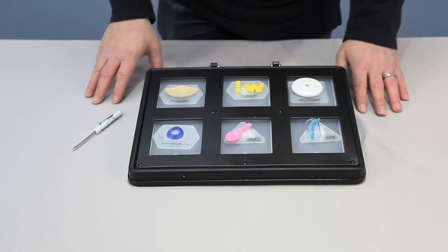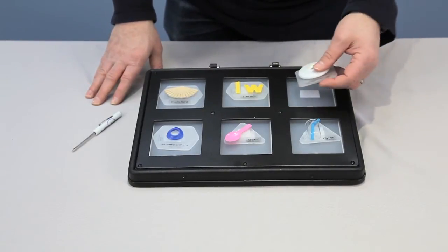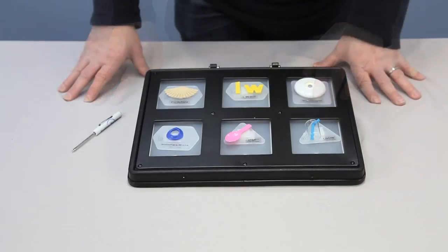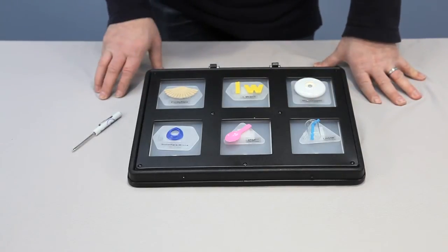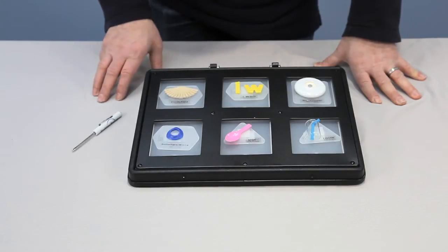It's very simple. The symbols are removable with velcro and you can make your own symbols to put on there. The record time is about six seconds per message, and you're able to record 36 messages total — six messages per level. And there you have it: the 4040 Symbol Communicator for the visually impaired.